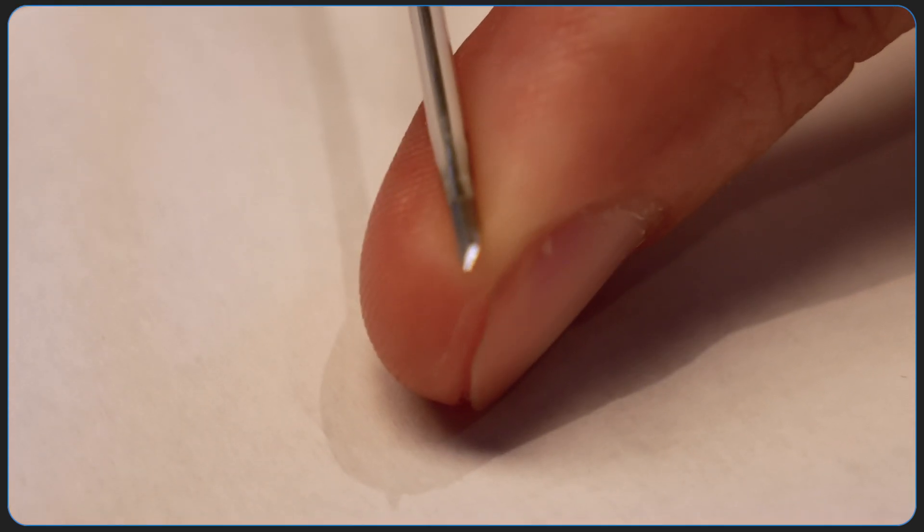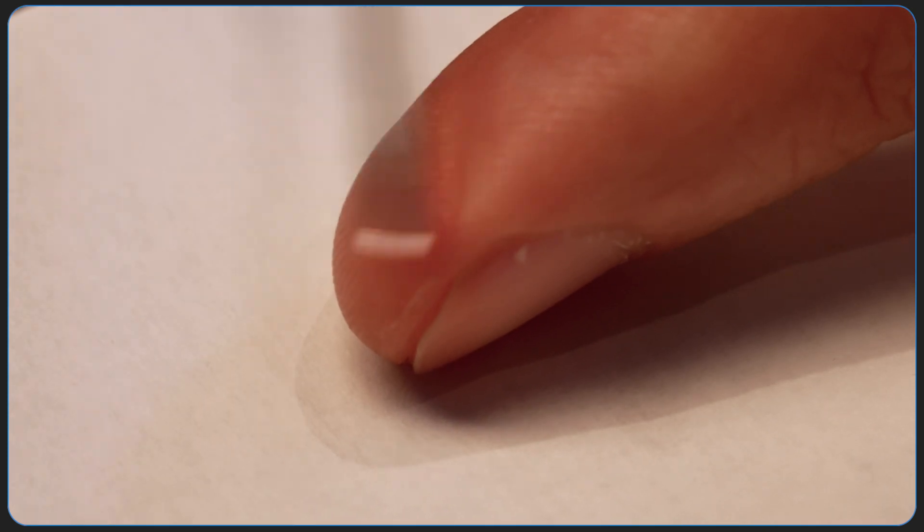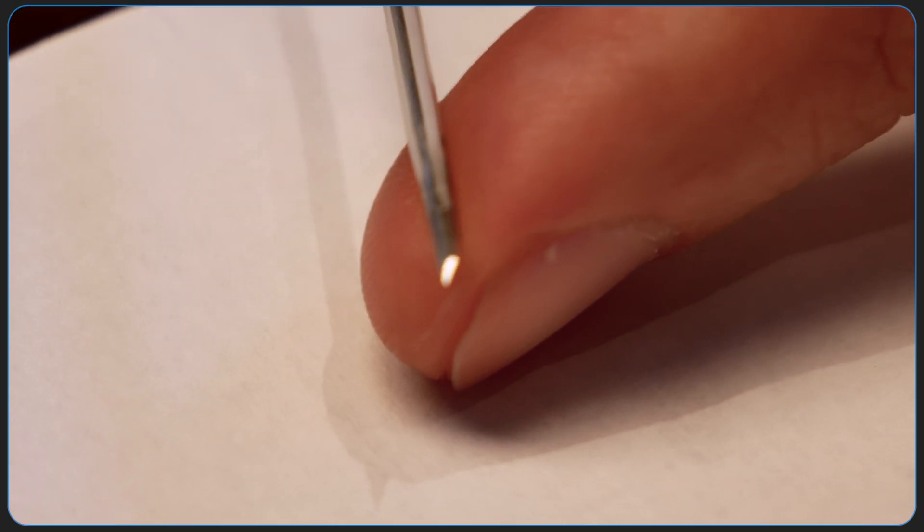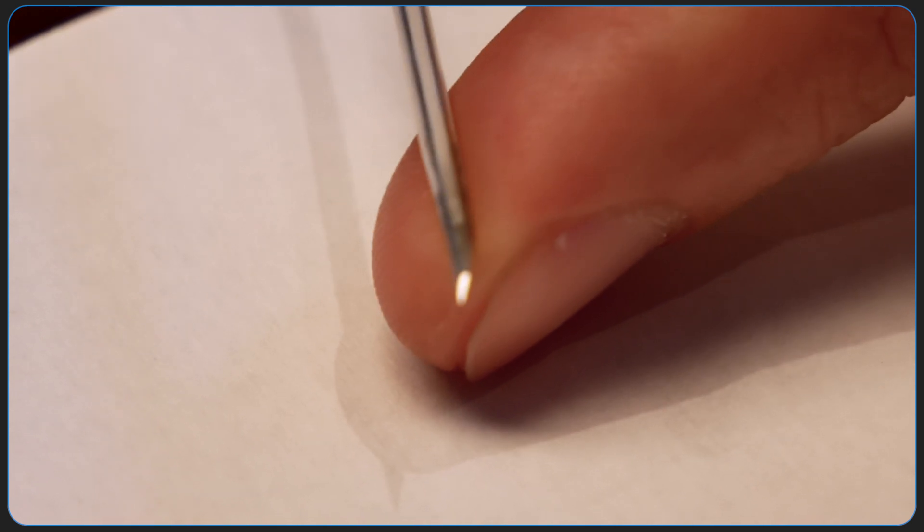So let me demonstrate this here. If I push the bottom part here into my finger and rub up and down as if I'm trying to cut, I'm not pushing that tip of the bevel in there so there's no penetration of the skin.